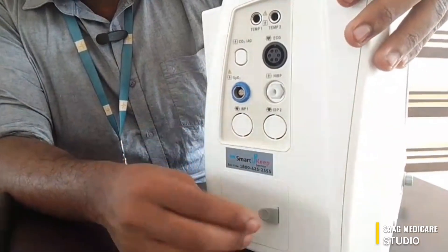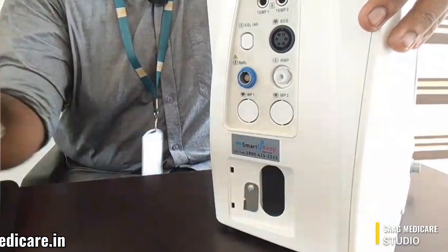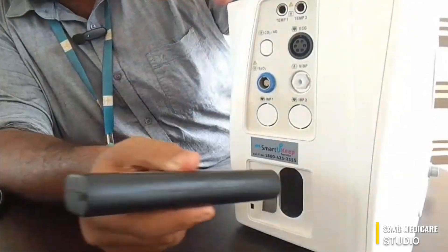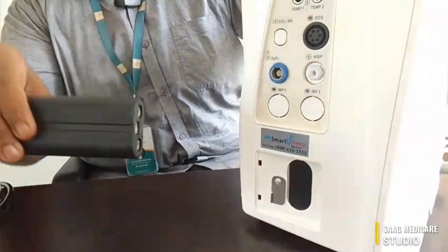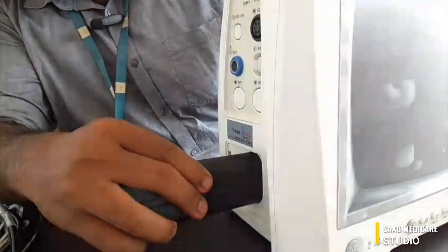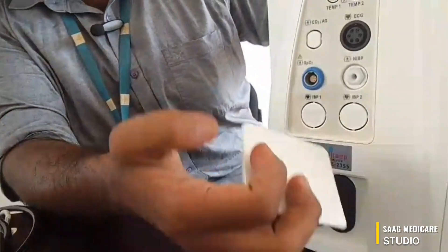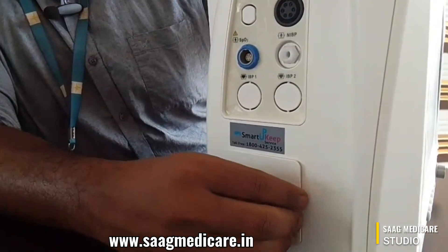Here is the battery compartment. Just pull this rubber and you can remove it. To insert the battery, you need to first observe how the three terminals are arranged. Based on that, there will be matching terminals inside. You can align accordingly and just insert your battery — keep it straight and push it in. Once the battery is inserted, just close the battery compartment.